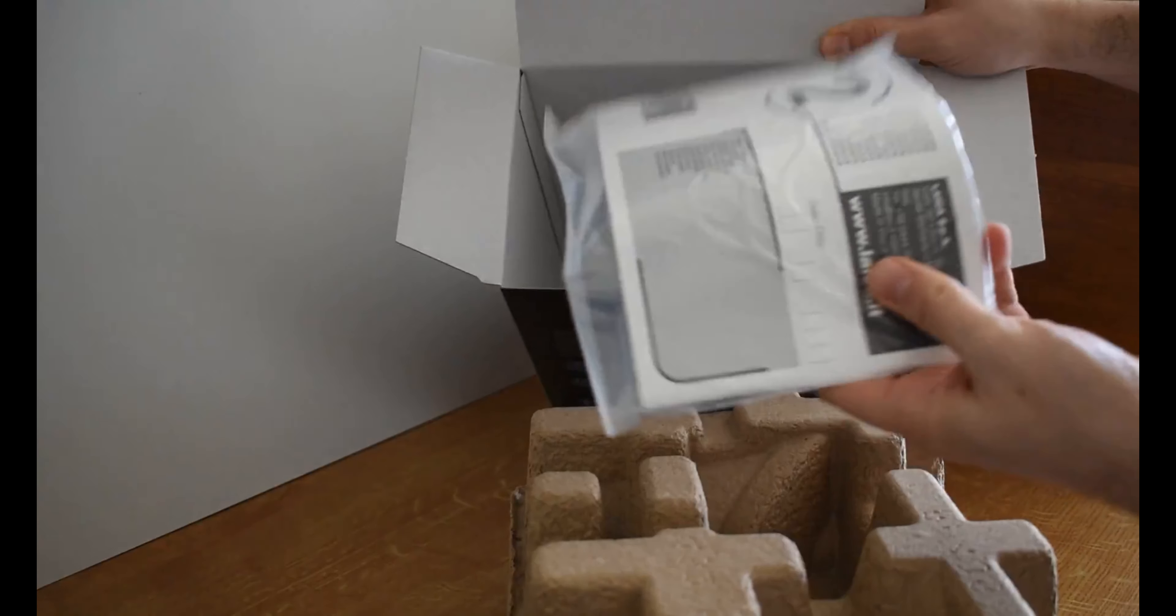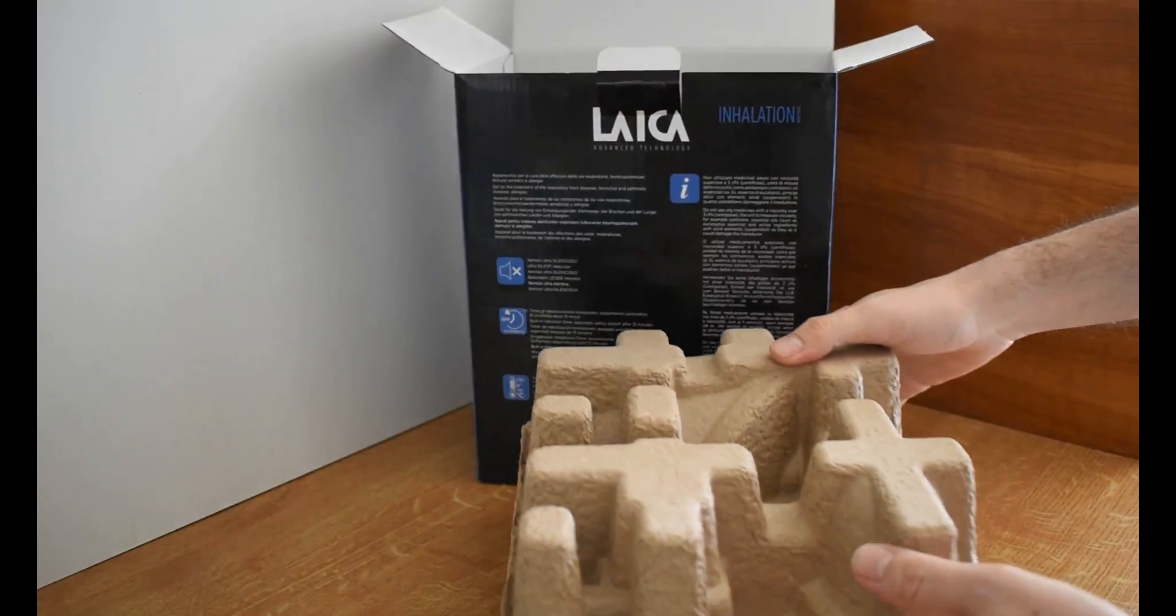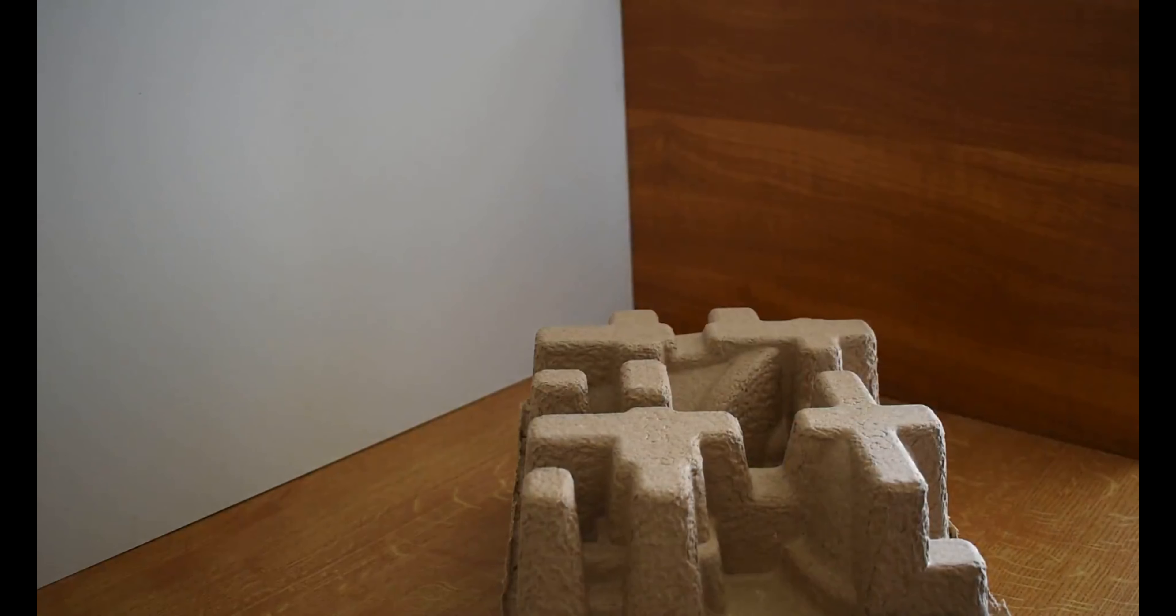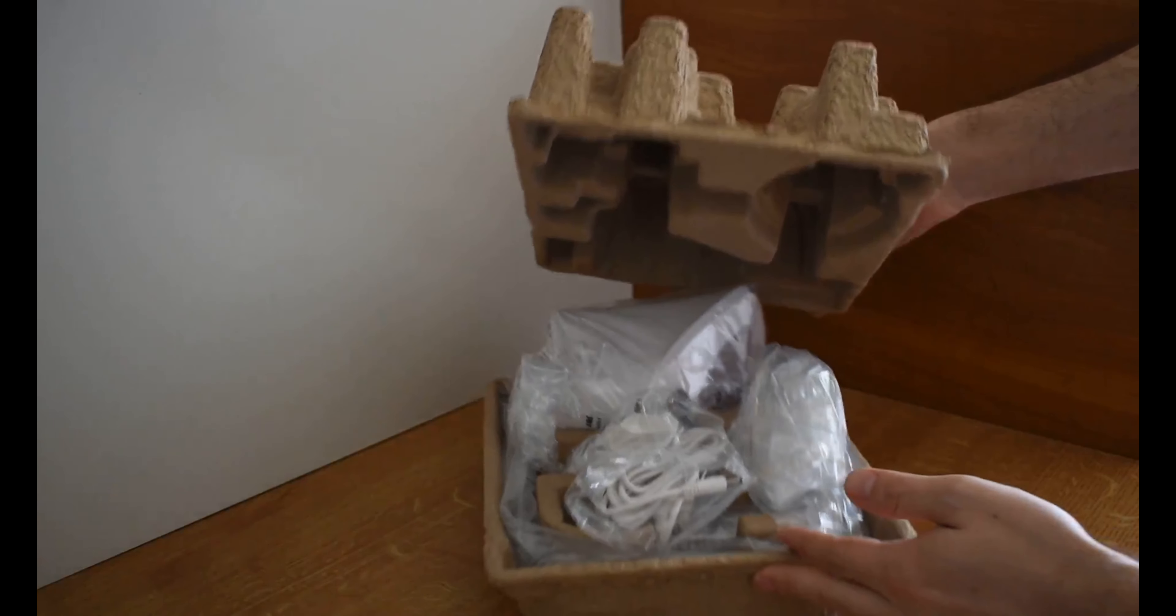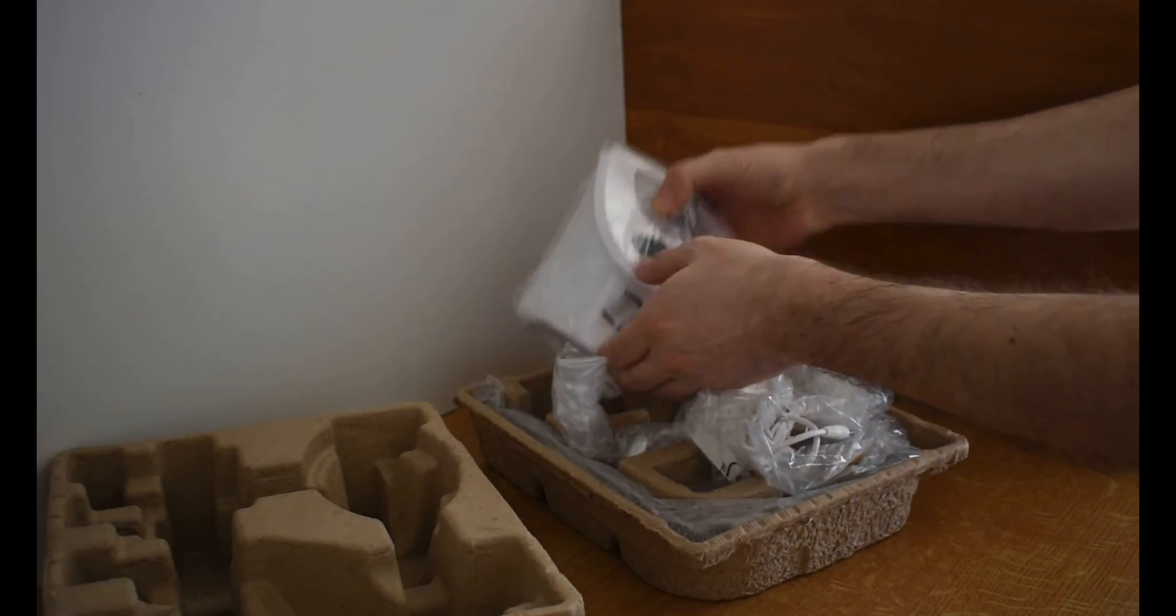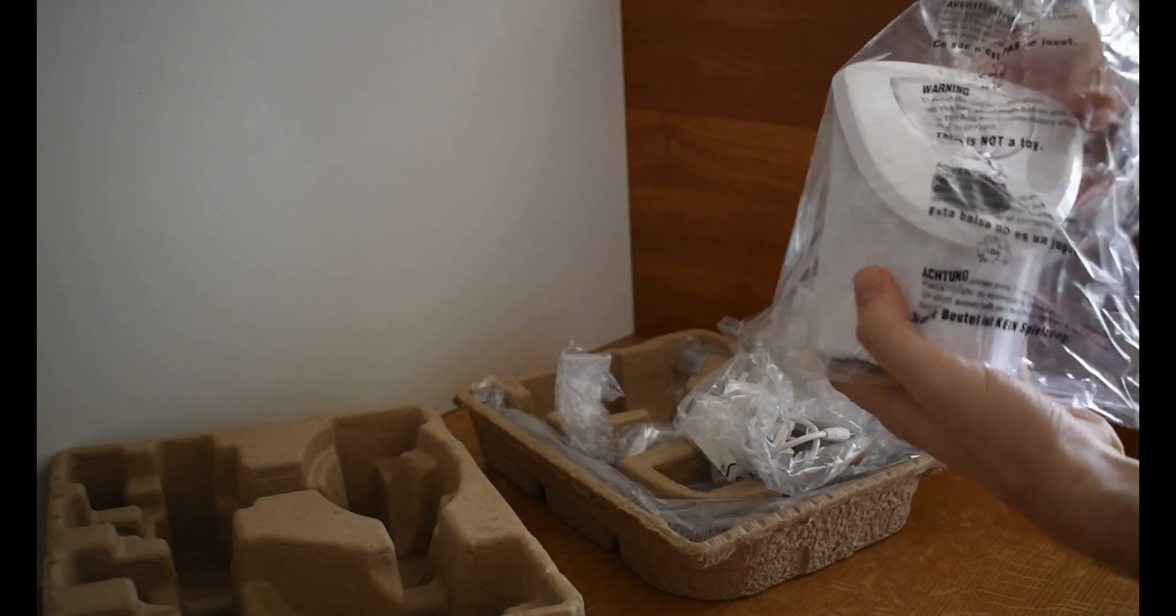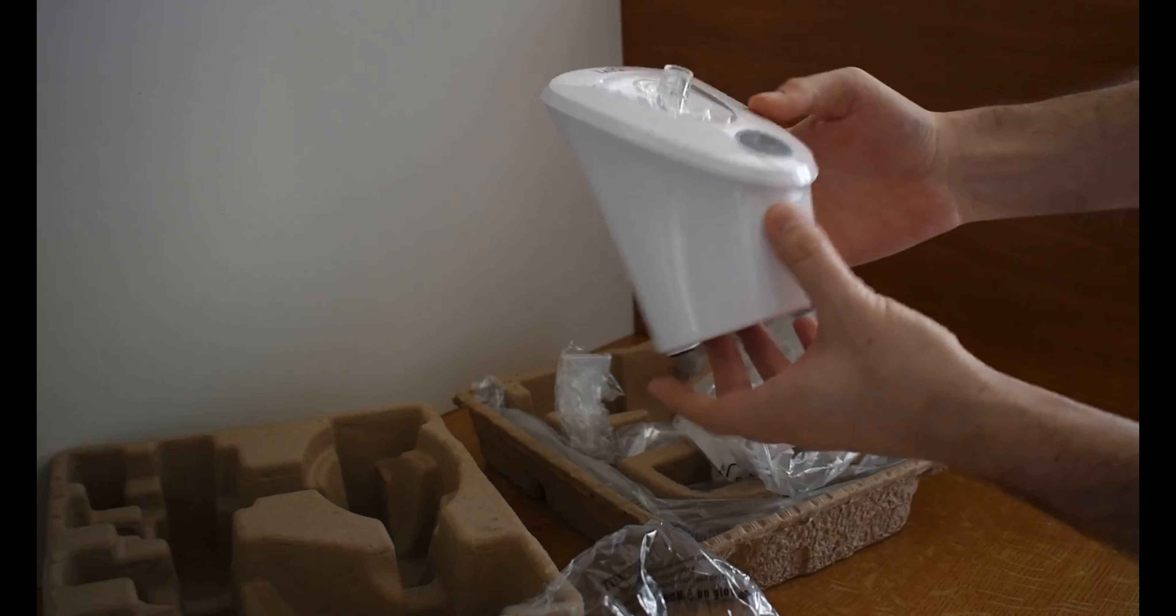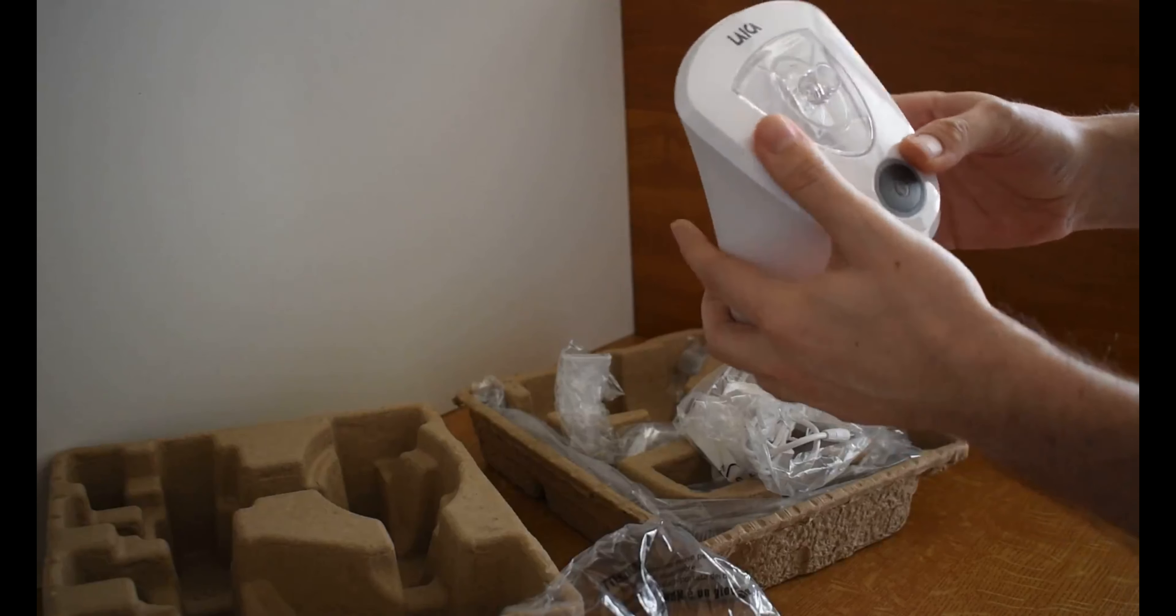This is the paperwork which we don't need, and this is how it's packed. Let me remove the box aside. Starting first with reviewing the device itself, all the items are packed in plastic bags which is great. This is how it looks like. The connector part is behind the on/off button on the top.